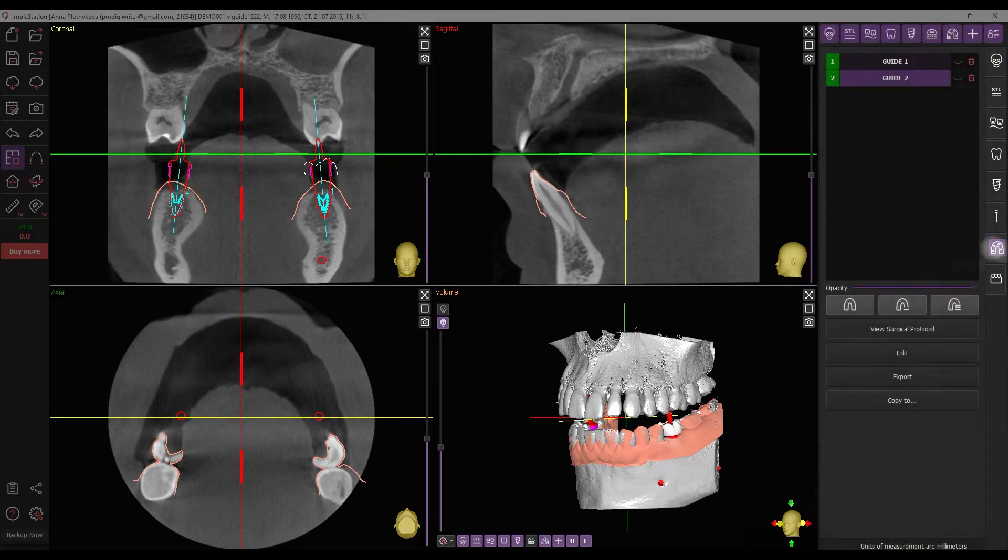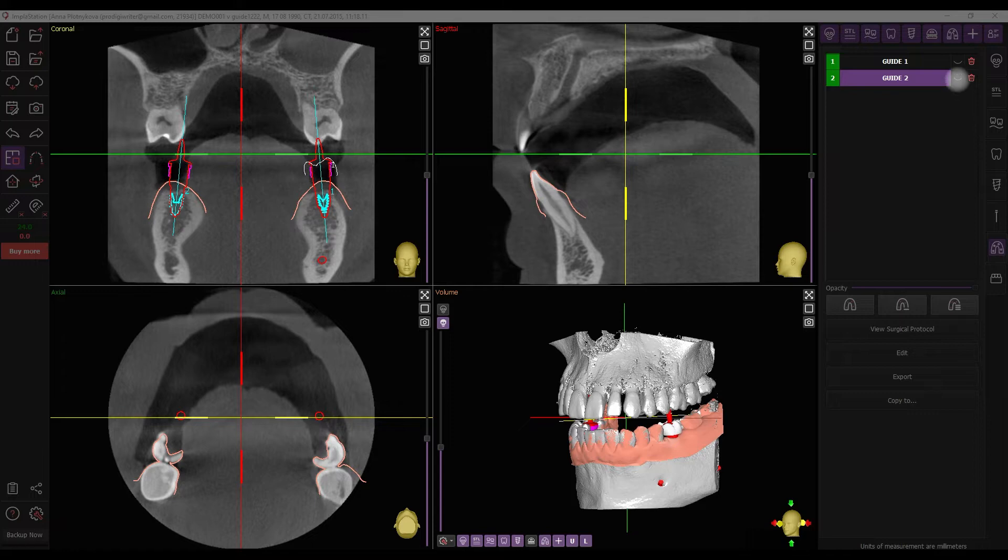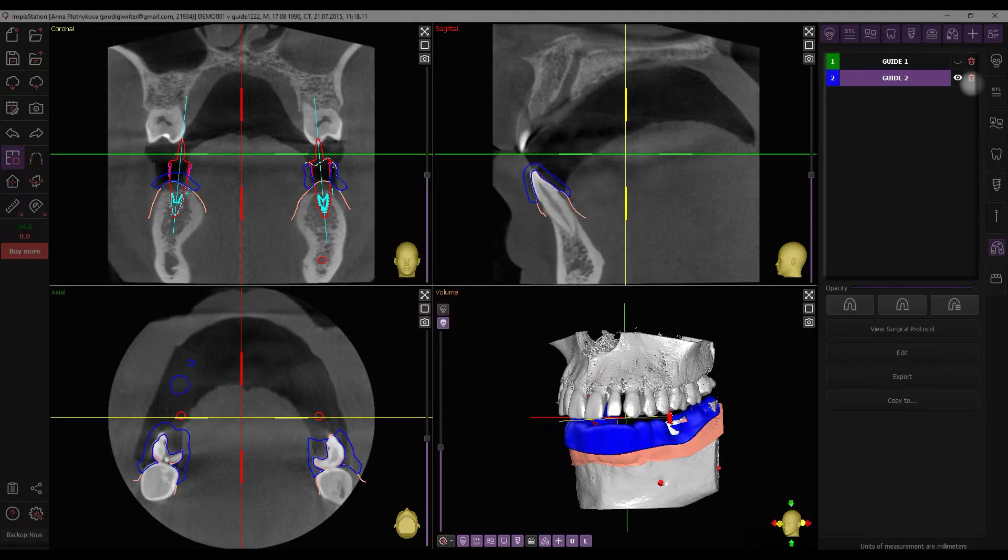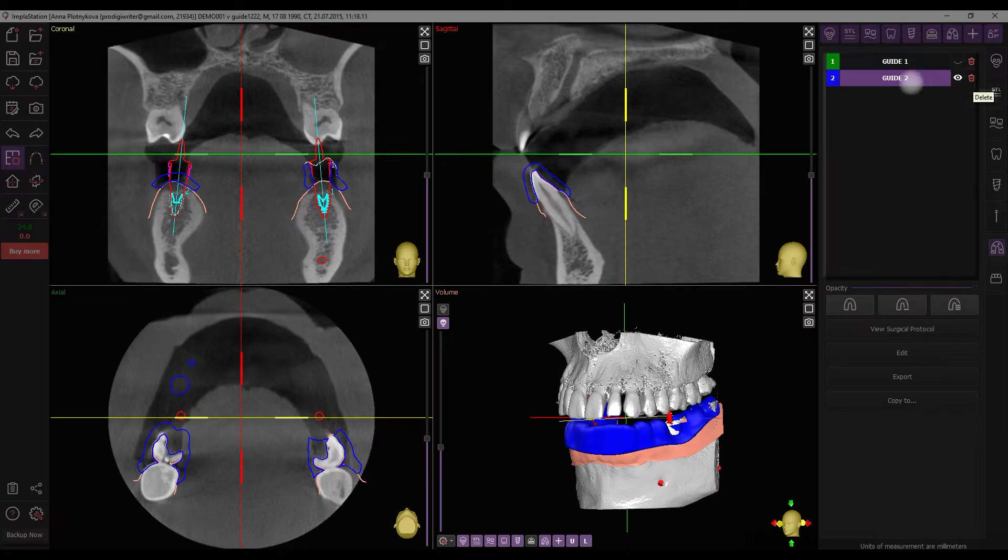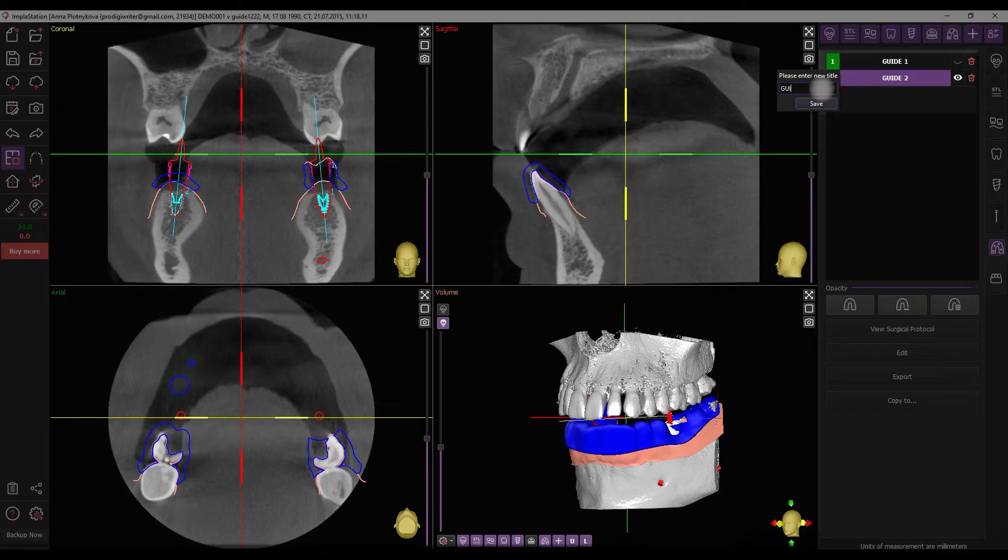Here is a menu of essential elements. List of created guides. This list displays all created guides. Buttons are provided for actions such as toggling visualizations, adjusting colors, and deleting guides as needed. Additionally, guides can be renamed directly from the list by right-clicking on them.